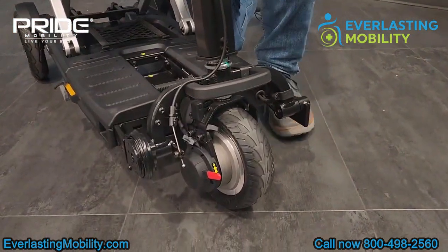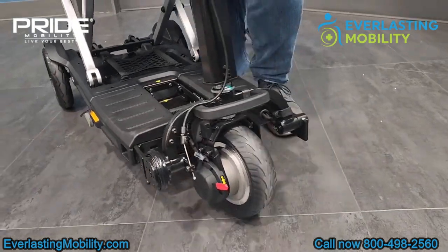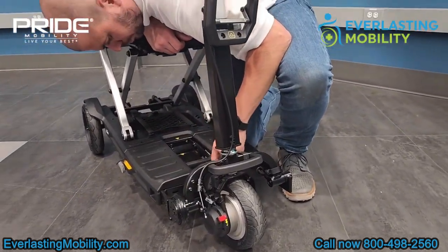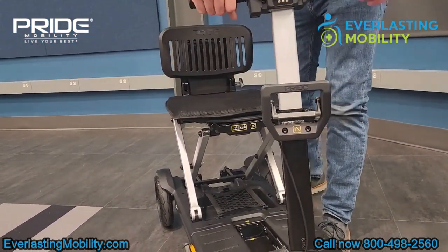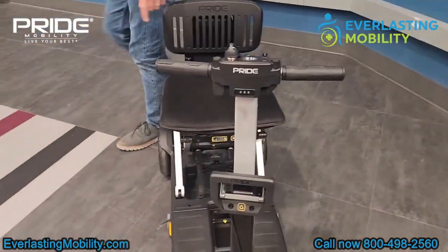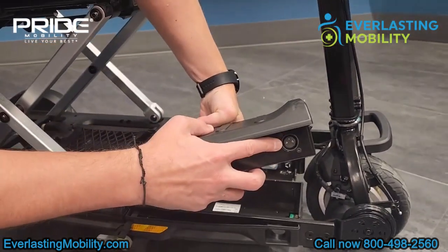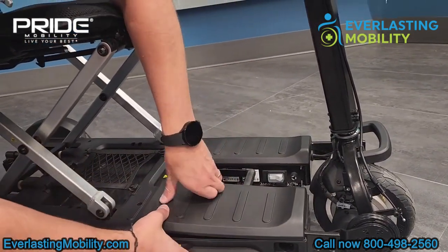This is your free wheel lever. If you press it down towards the unlock position, you can wheel the scooter manually — that's in case you run out of battery life. However, you can't operate it when it's in free wheel; you have to make sure it's in the locked or engaged position. The tiller is also telescoping, so you can pull it up or down to a comfortable driving height. The battery is located on the floorboard — you can charge it by plugging in directly, or remove the battery itself to bring inside your home to charge, then bring it back out.